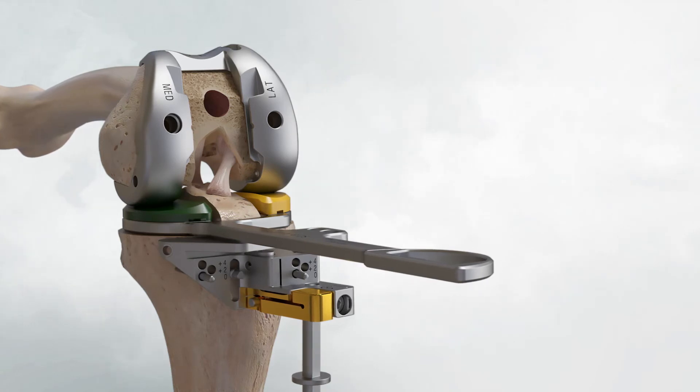Using the angled face on the femoral trial as the guide, remove the anterior intercondylar femoral bone using a narrow saw blade.